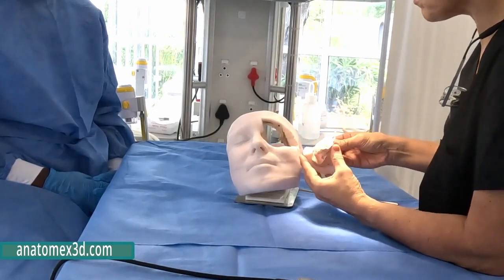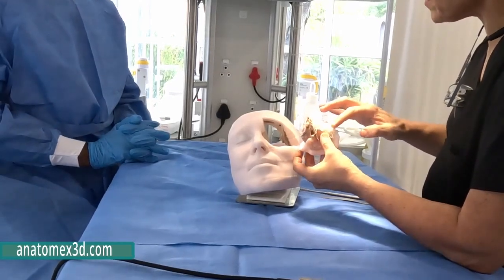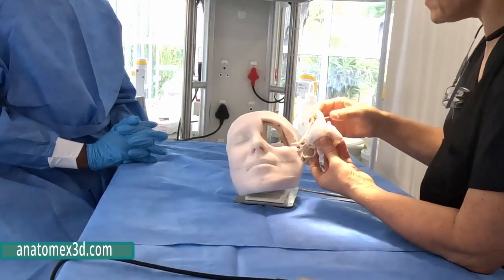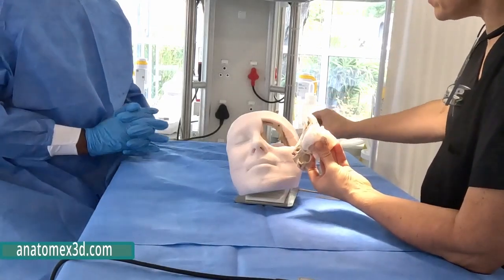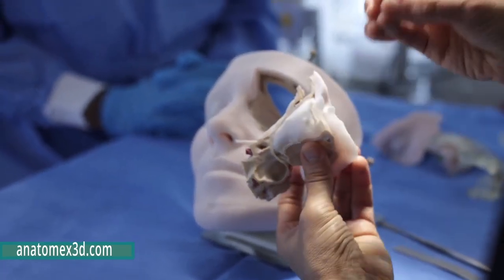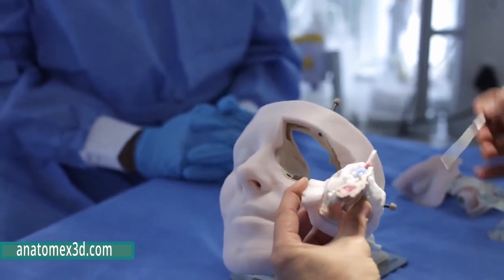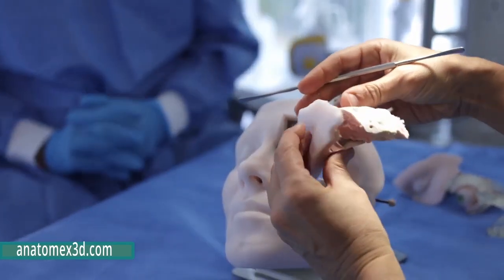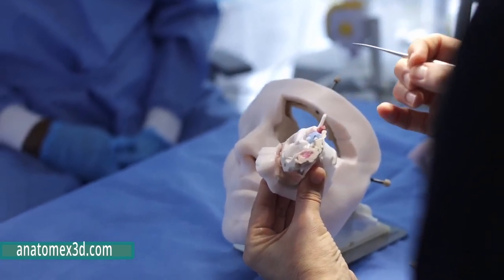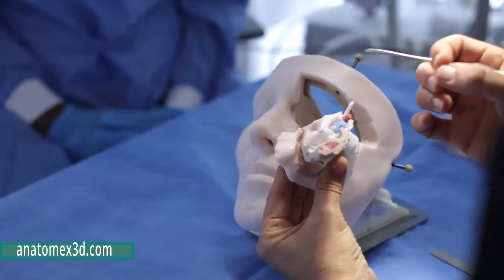And if I just turn this model around, you can see how amazingly it has the periorbita that contains all the muscles on the inside below the eyelid, as we've just seen. If we take those structures off, we're going to find these structures in more detail. We'll have the muscles, the fat, the arteries, the nerves. And what we see at the back, if you look at this eye from the back, you can see all the different important structures. And this is the nitty-gritty of transorbital surgery for the neurosurgeon.